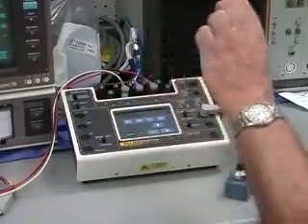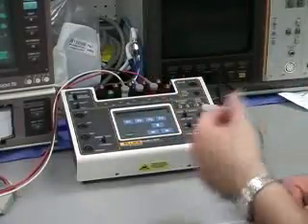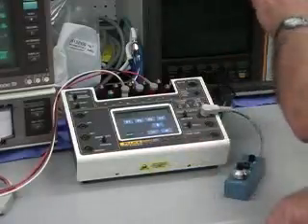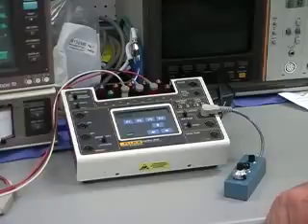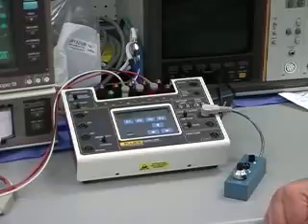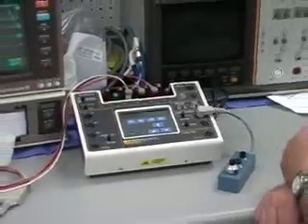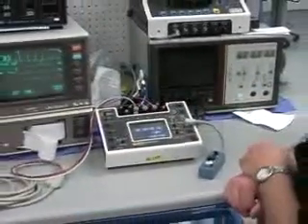You're trying to measure very low levels of blood pressure in the presence of the patient breathing. So many of the monitors have these capabilities, especially the Hewlett-Packards, of zeroing out that artifact. So when you're breathing, you can modify or create variations in your pulmonary artery and wedge pressures. So we simulate those conditions, but it's a pretty fine point.